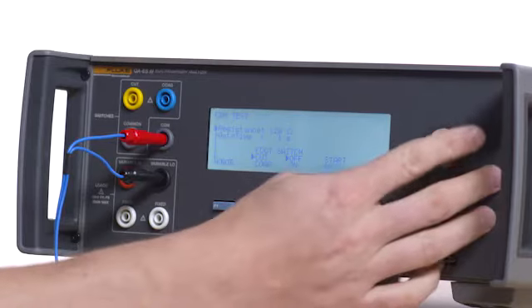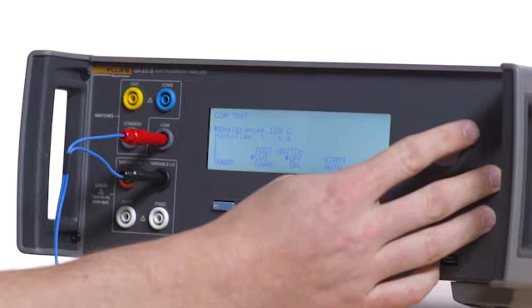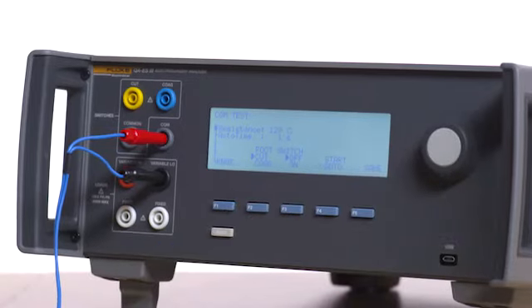Slowly increase resistance in 1 ohm increments until the REM alarm sounds. The alarm should sound between 128 and 142 ohms.